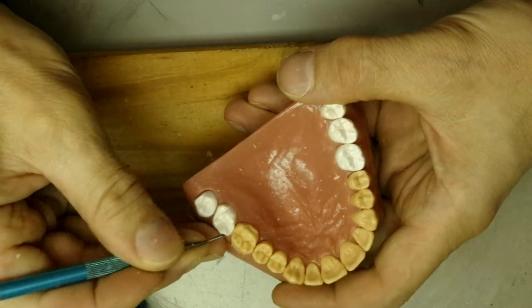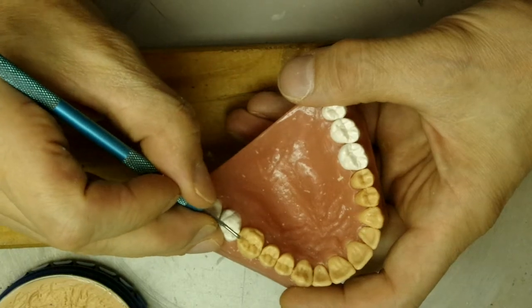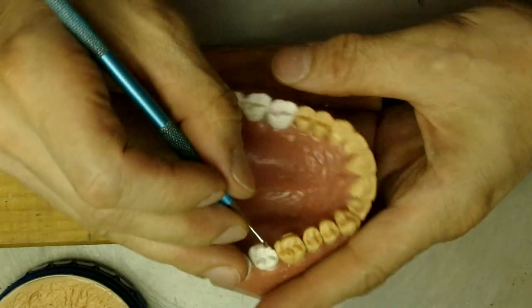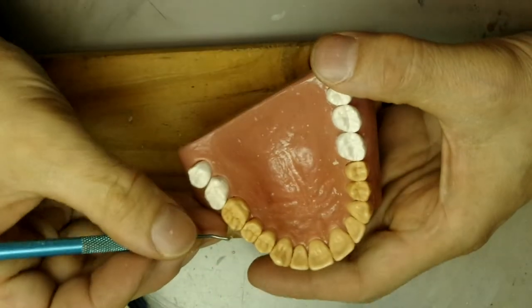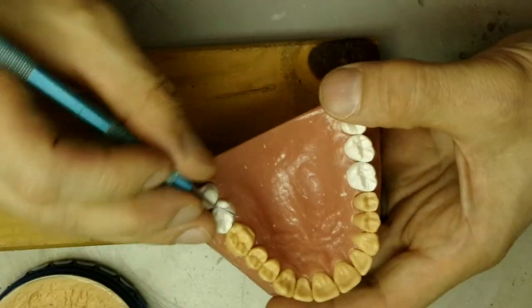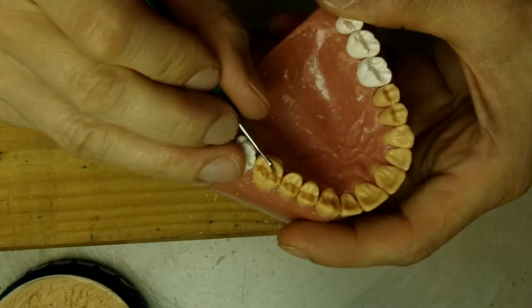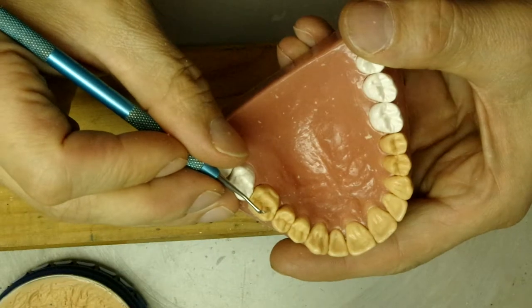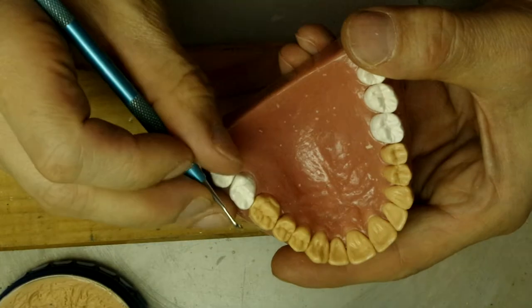What I like to do is make the grooves sharp in the interior of the tooth, and then kind of widen it as you come out to the top. You see it becomes very sharp here, and then as you come up you kind of blend it with the heat, so it becomes more of a depression than a groove.